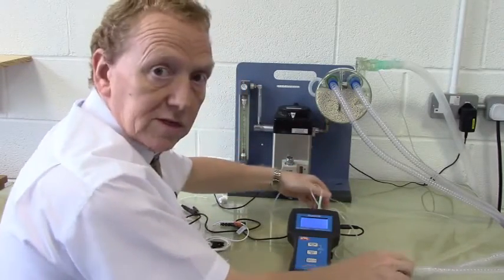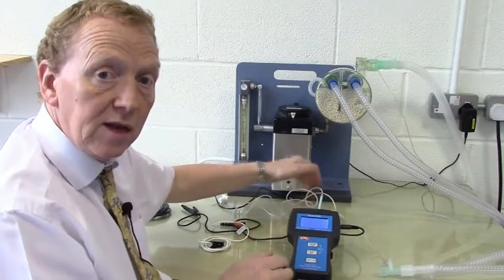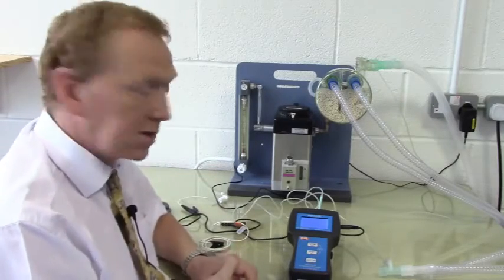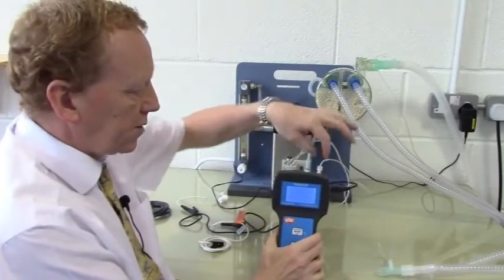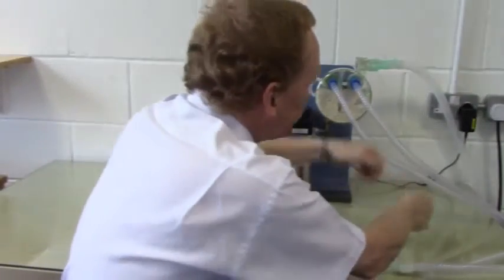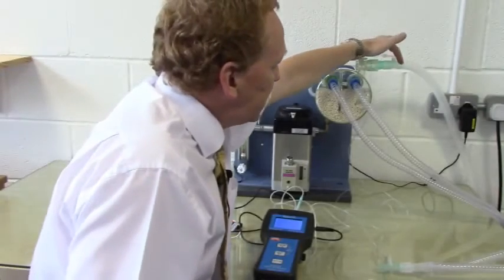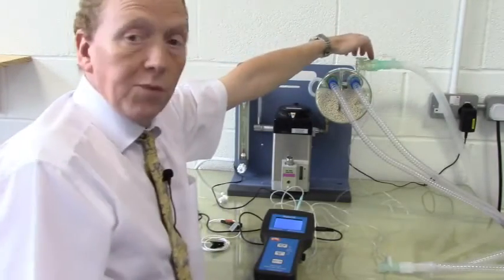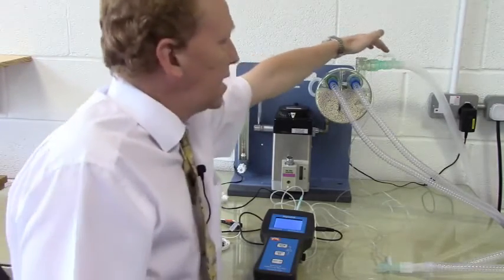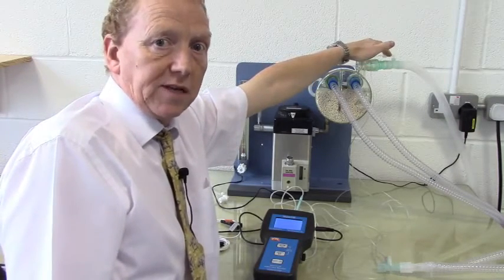It's also important when using a side stream device that the waste gas is removed and put properly back into the evacuation circuit, otherwise small amounts of isoflurane will be put back into the room. The waste port on Impact 3 sits at the back here, and the line leading from it leads down to a 22mm connector that goes into the waste line on the exit port from your circle or from your standard non-rebreathing circuit. Again, have the entrance point at the top to avoid water or any debris falling into the exit line.